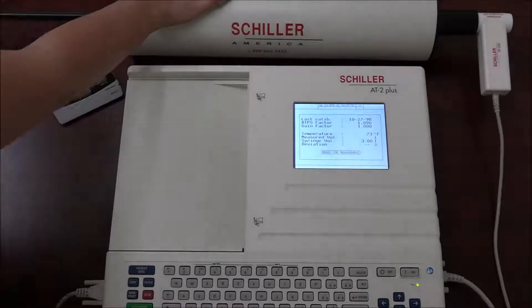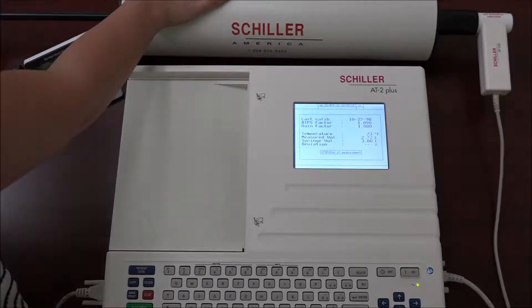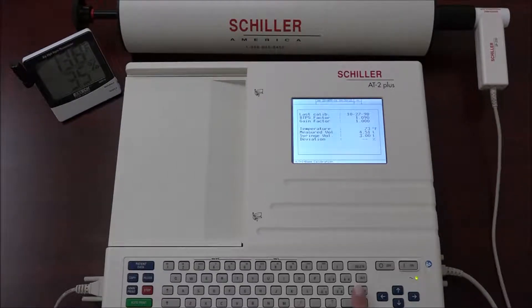While pumping, the unit records the volume being pumped through the flow sensor and indicates it on the display under measured volume. Press the stop key when finished pumping. Enter the reference volume and press the enter key to confirm. The message "calibration complete" will appear on the display.